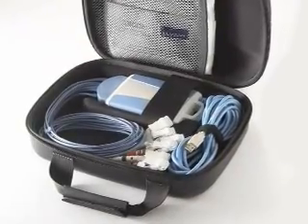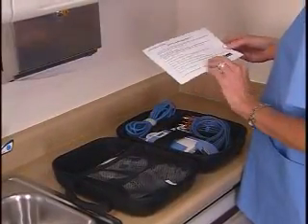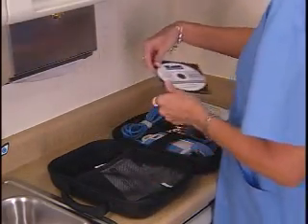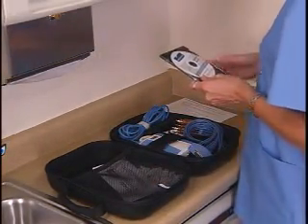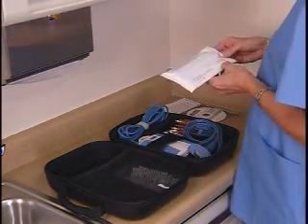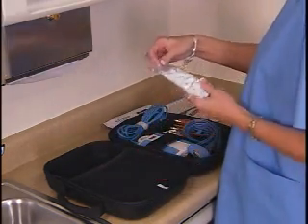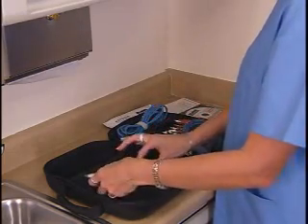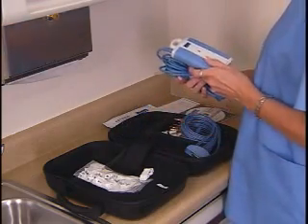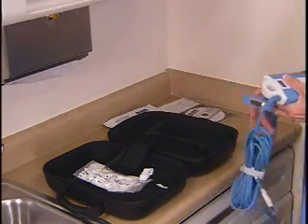To begin, we will review the package contents and setup of the IQecg. The IQecg comes in a carrying case with a quick reference guide, operations manual CD, one package of electrodes, and a package of 10 universal clips. The IQecg device and one 10-lead patient cable.